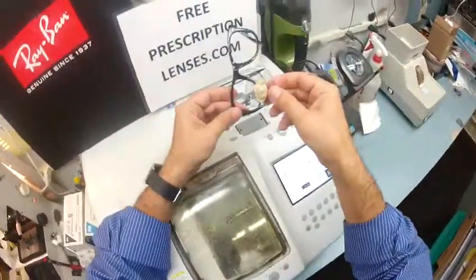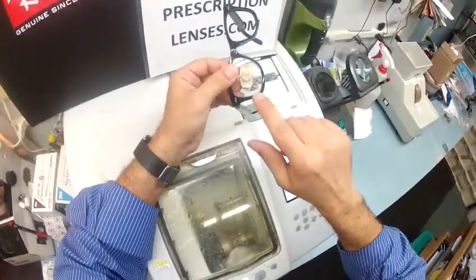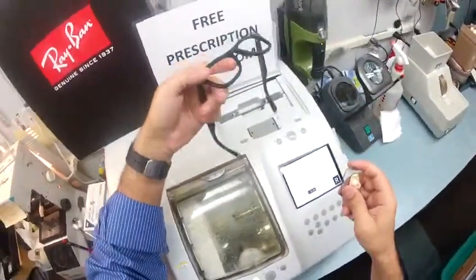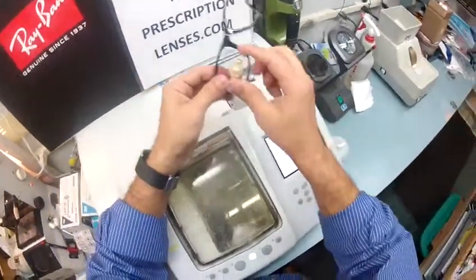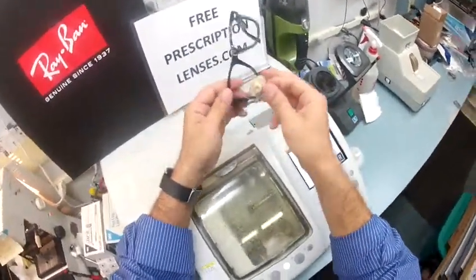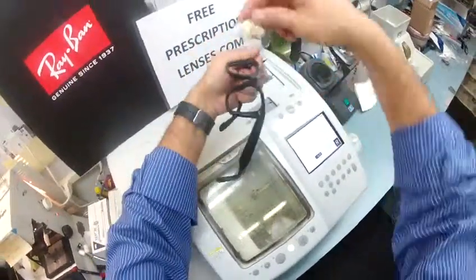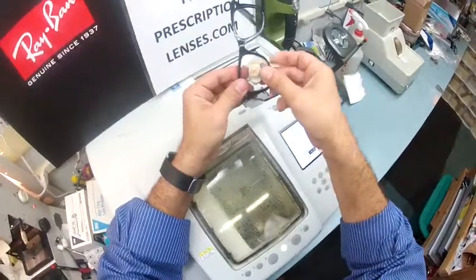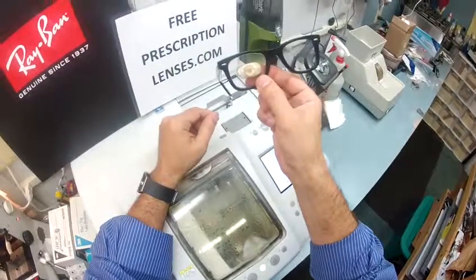Let's see if your lenses fit. I'm going to tuck them in at the outside corner — this is a good way if you ever want to change your lenses out. You tuck them in at the outside with the frame pointed upright. To take them out, you push them downward — it's always with the thumb, always at the nose. I have the frame pointed upright, working on the side closest to me. I tuck it in at the outside corner, and using my thumbs, I press down and it snaps right into the frame.